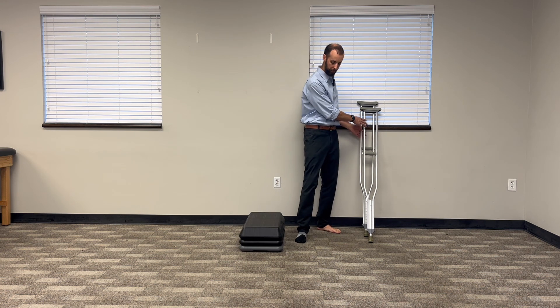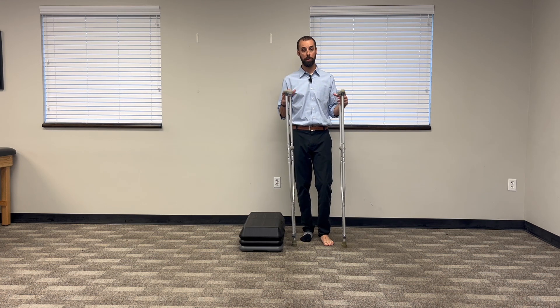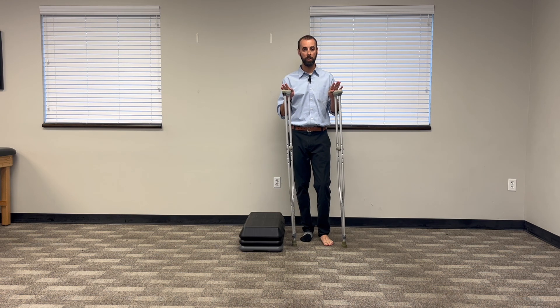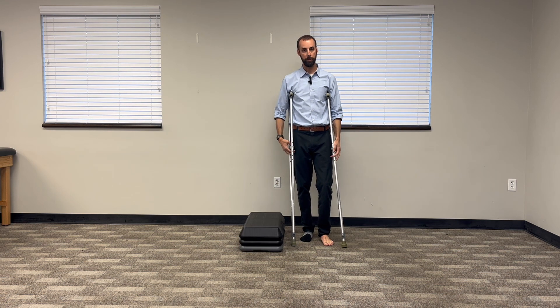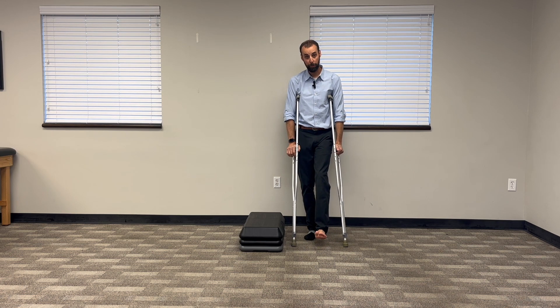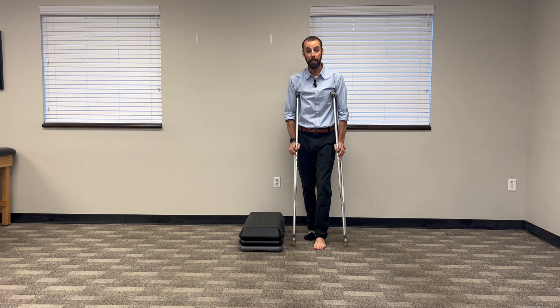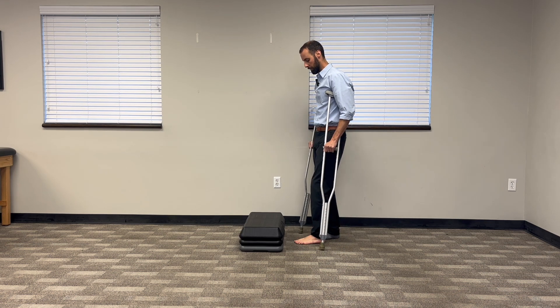I have my step here and I have two crutches. We did another video on how to use crutches and how to size them to you. It's really important on steps and curbs that your crutches fit you appropriately, so watch that first and learn how to set them up for you. But let's say you're on two crutches — that's our first scenario. I have my sock off here because my bare foot — we'll pretend like that's my injured foot. I took the sock off just so it'd be easier for you to see in this video.